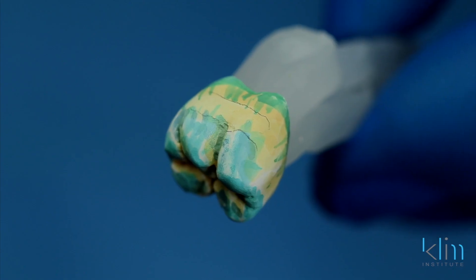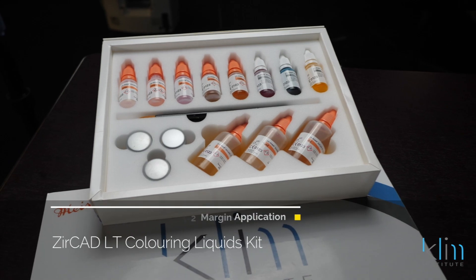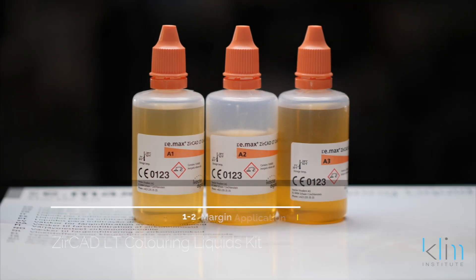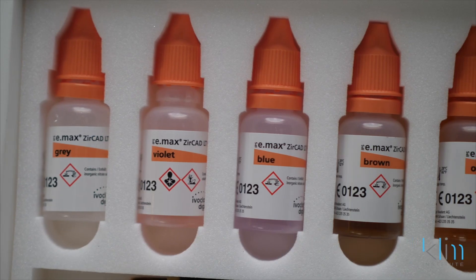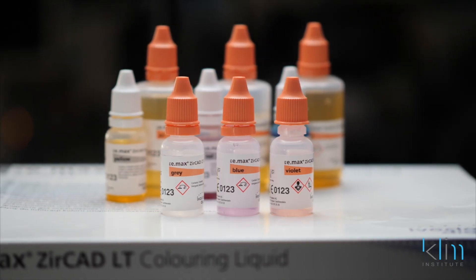My goal here is to create a multi-effect — that's number one — and bring down the values of the cusp tips. There is a kit that comes with the basic colors: A1, A2, and A3. Those are the basic colors. And then we have the effect shades. These are the shades that we use to add characteristics with, such as blue, violet, and gray.